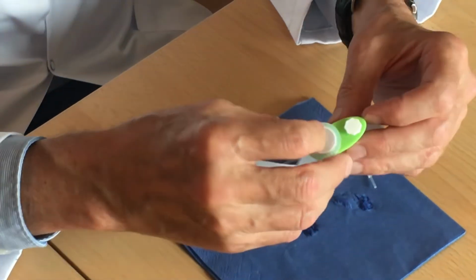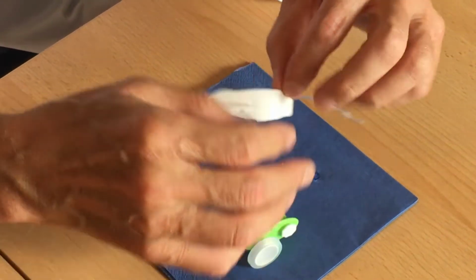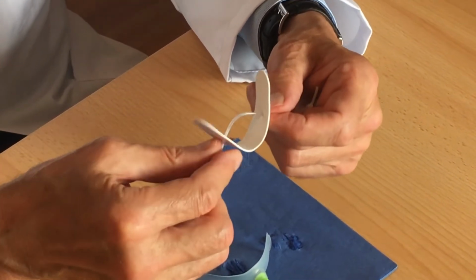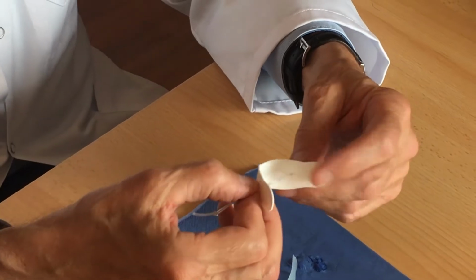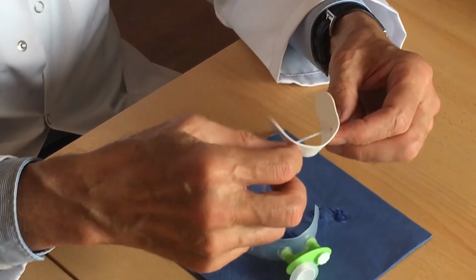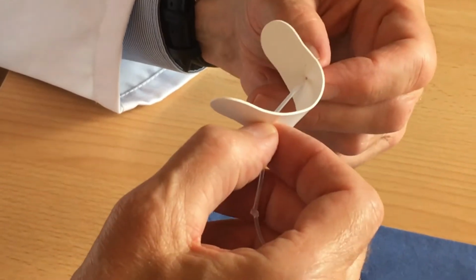We have to discern between the membrane which is put on top of the funnel, and here we only have the membrane which is placed between the lips and the teeth, which is a very small and flexible membrane, which can be used to ensure the negative pressure inside the mouth, also by the suction test.